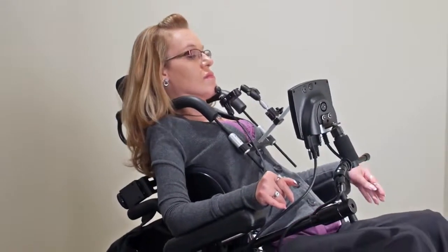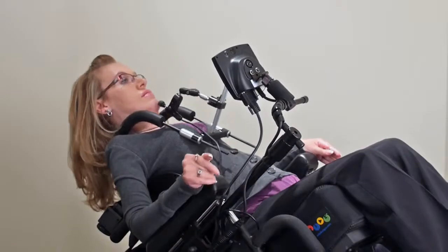This style of mount helps to maintain the joystick in a constant location throughout tilt and recline.